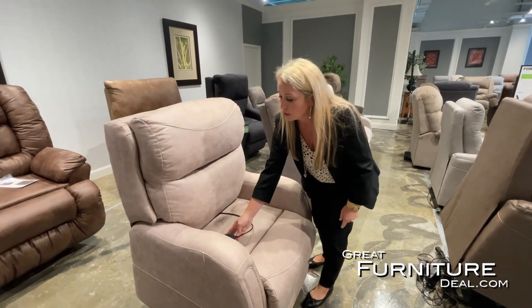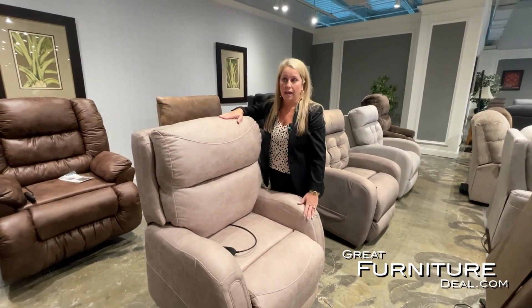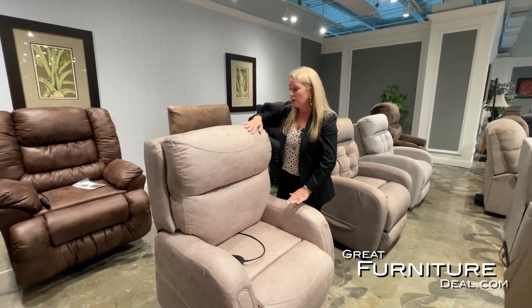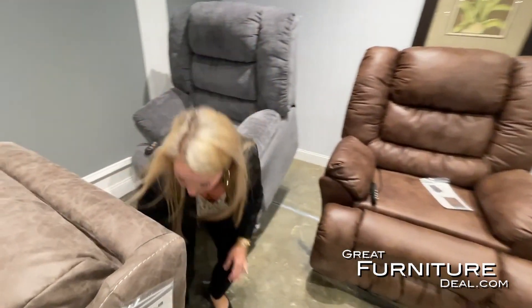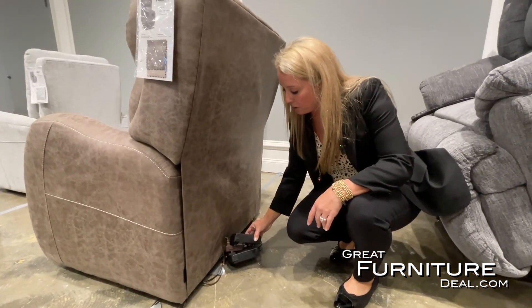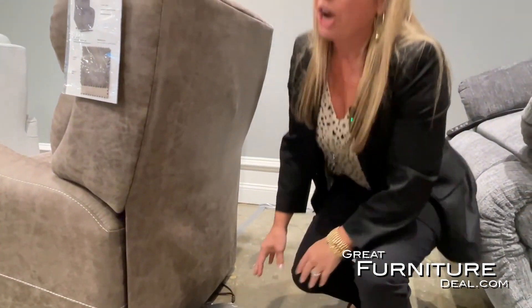This fabric is 100% polyester — we use fabrics that are cleanable for our lift chair line with simple controls. We also have emergency safety measures: the back of this chair has what we call external transformers on all of them, and those external transformers have a backup battery pack. A nine-volt battery fits right in here, and if the power goes out, the customer has that one-time use to get themselves out of the chair.